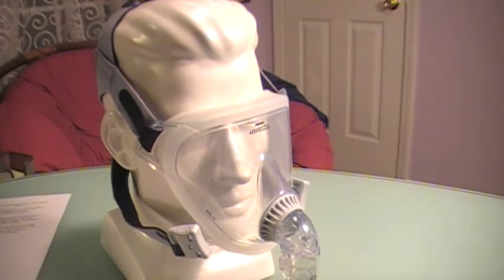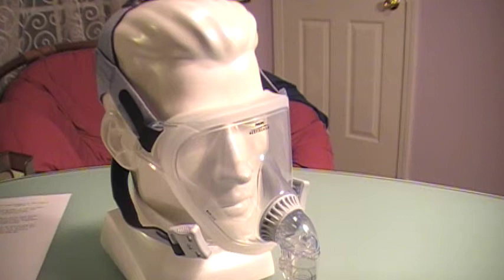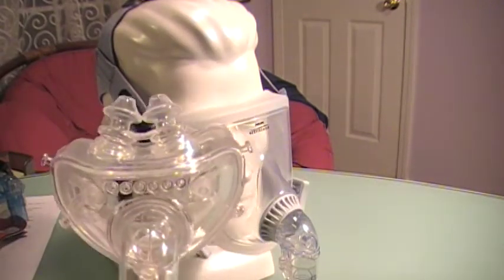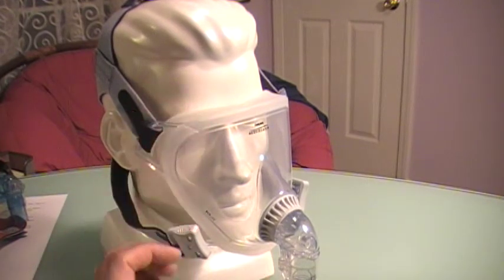Personally speaking, I haven't had much success with this mask. I only have one person I've been able to help out by recommending this, and it has worked out. Generally, somebody going for this should first go through all other types of full face masks before leaning into this — that's just my professional opinion. After going through the entire variety of full face masks and hybrids, if that doesn't work out, that's when I bring this out. This is more of a last resort.